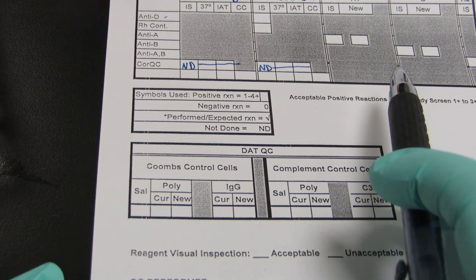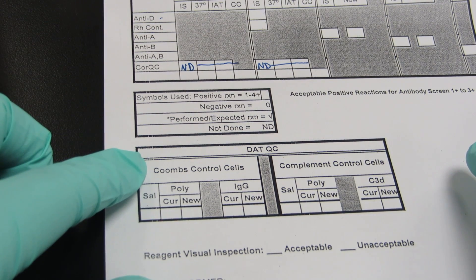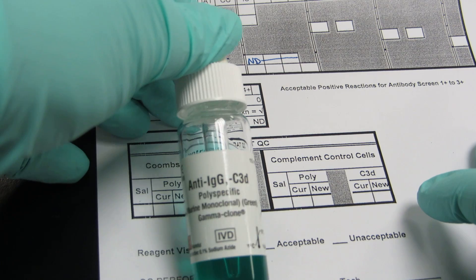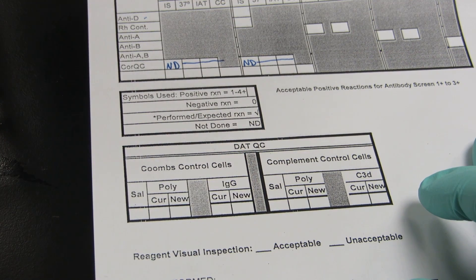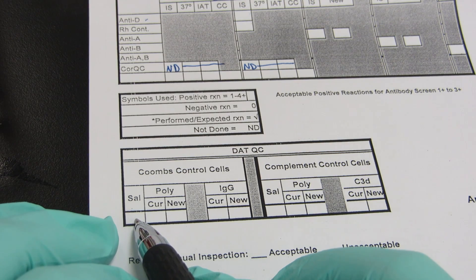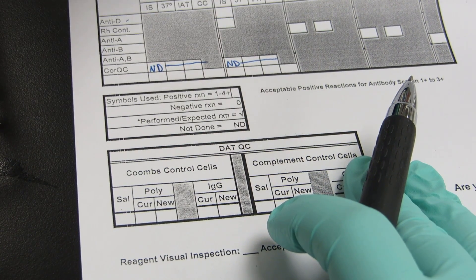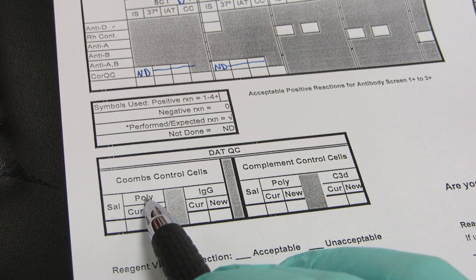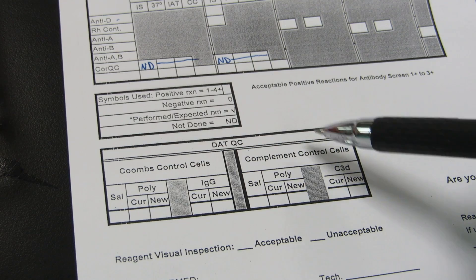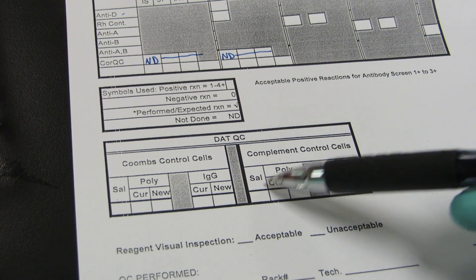How we're going to use this QC form: we have a saline control to ensure that when we run it with the Coombs cells, our Coombs cells are not spontaneously clumping. Our polyspecific, which has anti-IgG and anti-complement, also reacts with the Coombs control cells because the anti-IgG will bind to the IgG on the check cell — so that should be positive, and the saline should be negative. Your monospecific anti-IgG should also react with the check cells. I'm going to demonstrate those three tubes — saline, poly, and IgG. I'm not going to demonstrate the right side because it's exactly the same, except instead of check cells you use complement check cells, and instead of IgG you use complement. You still use your poly and saline controls as well.